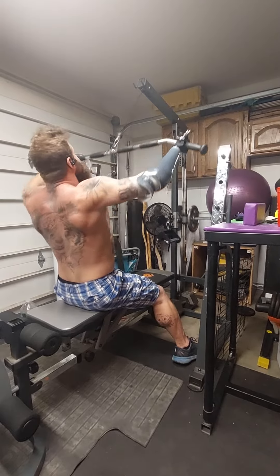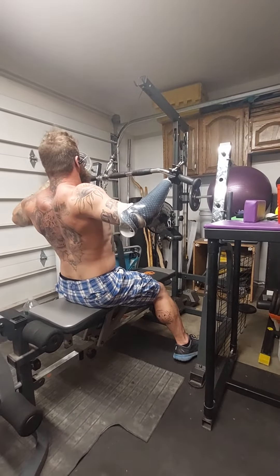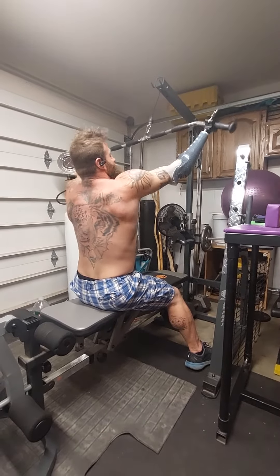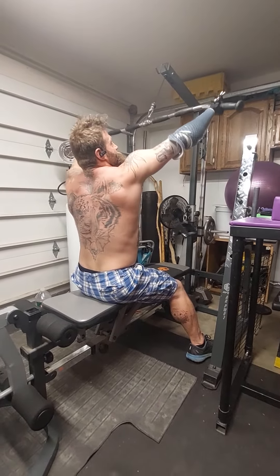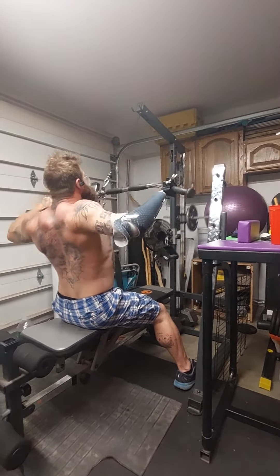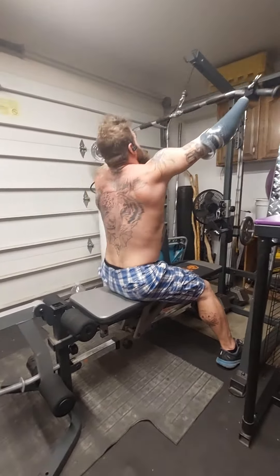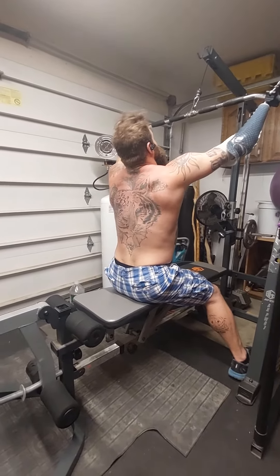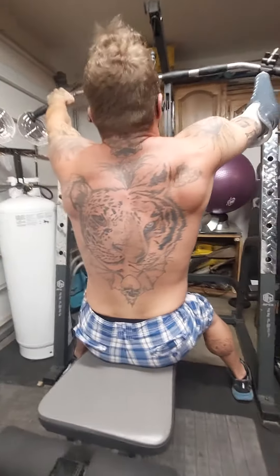I feel awkward, but I have more mobility, more control, and I have this option instead of not. The hand swivels. How does that look from behind? Does it look straight? Yeah, it does. Go ahead and get right behind me and see if I'm pulling straight.